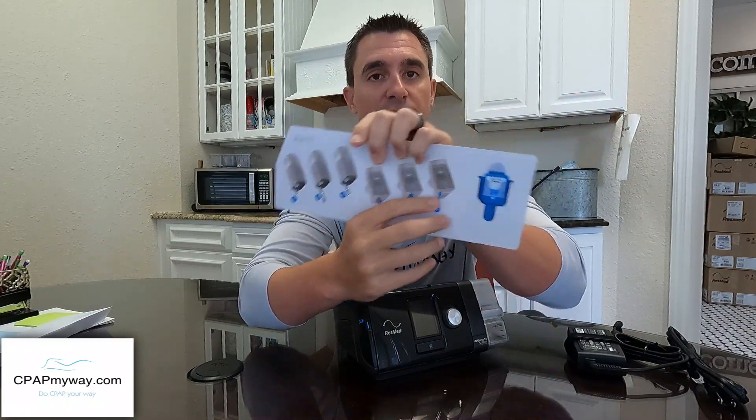This is the same unit with or without the modem, which means it's going to work great — there really aren't any therapy-related issues to be concerned about at all. The only concern is connectivity if you need to see your data. To get a download or compliance reports, all you have to do is come to the side of your ResMed here — the left side of the machine when you're looking at it — open up that SD card flap, push the little release, and you've got your SD card. In the bag with your new ResMed 10 device there's going to be a little envelope with a protective sleeve — we recommend you put it in there to keep it safe.